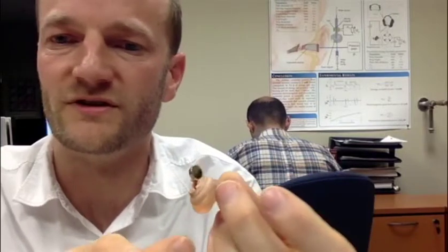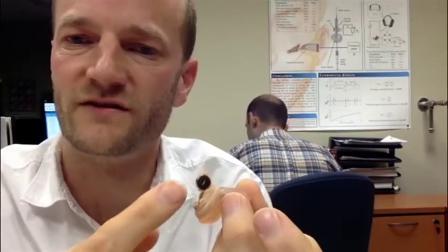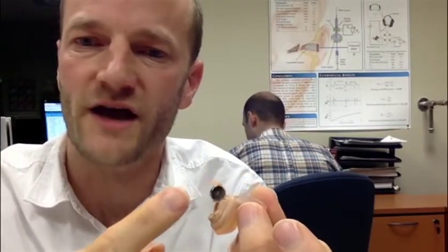And those batteries are really, really small. I can show you one here. I will open that door latch. And you can see how small this is and how inconvenient this is for people that don't necessarily have my dexterity to open that little latch and change the battery.